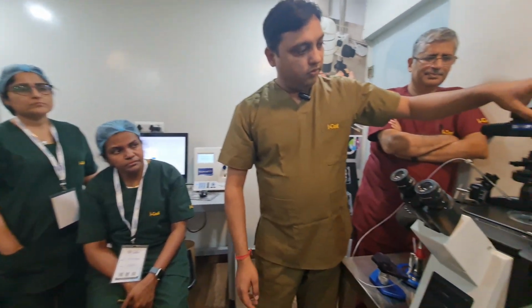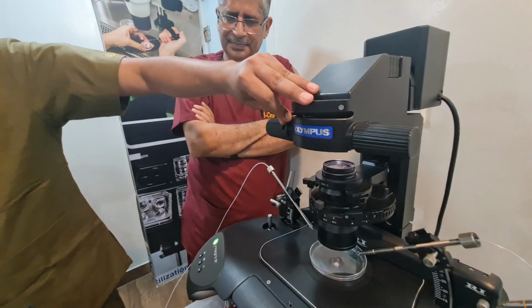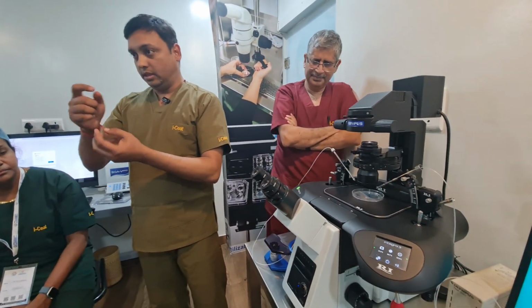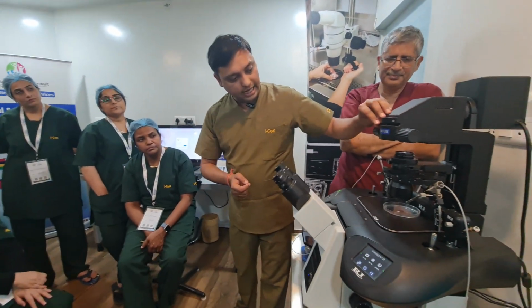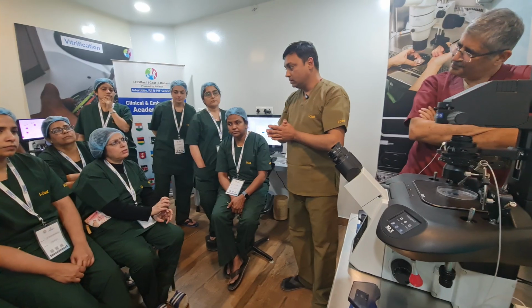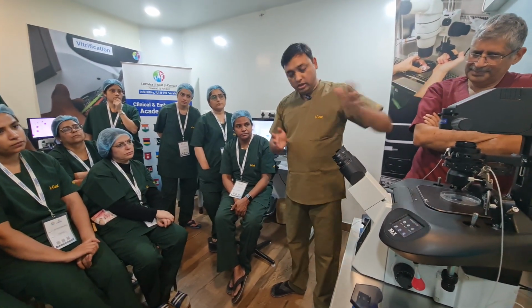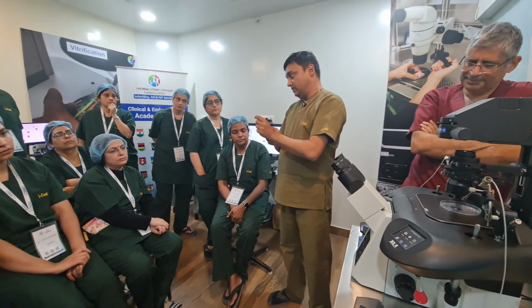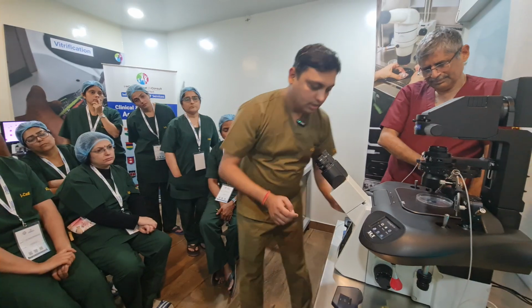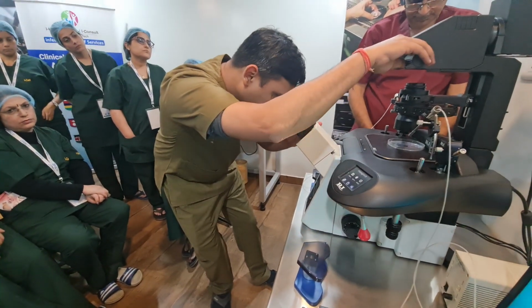This is the part from where we set the light. Actually this is entirely open, right? For our objective, if you see the 4x objective, there is one open space, a hole. So we should set the light accordingly so that our light goes only on that path. Something like an aperture. So basically this is the aperture that you set according to your objective size. So I will go to 4x first, look inside, put it to minimal and then set it.